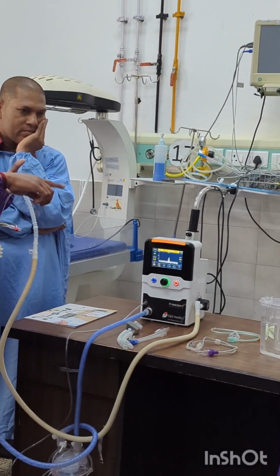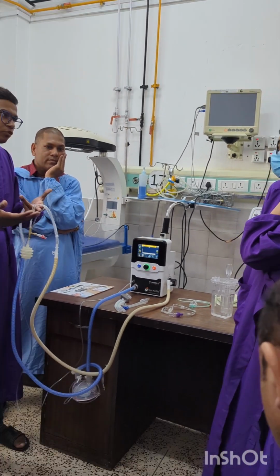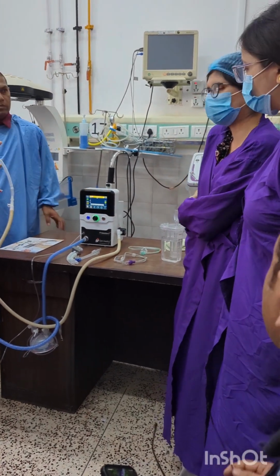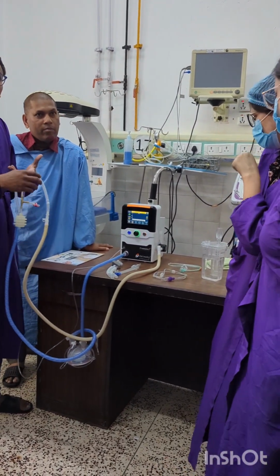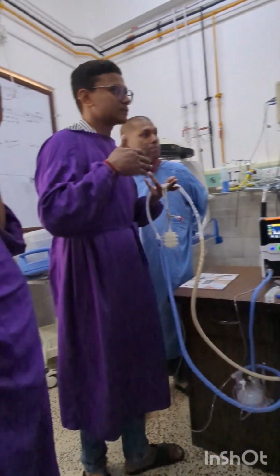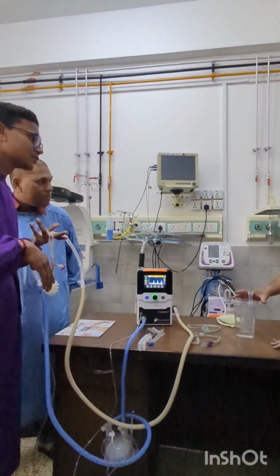Another beautiful advantage: if the baby breathes spontaneously again, after 3 to 4 consecutive breaths the machine will shift to nCPAP mode again, automatically switching over between apnea and nCPAP. It does not require calibration. The machine itself has the expiratory valve.